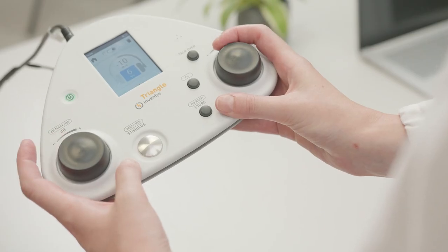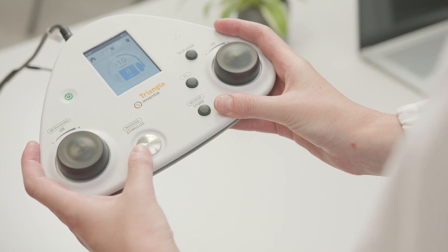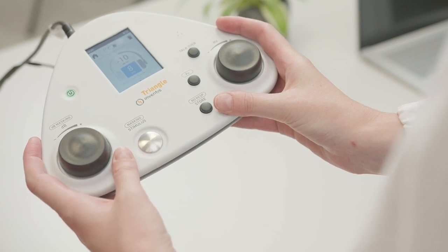In addition to its basic features, Triangle can offer a wide range of settings for pure tone audiometry. Of these, manual testing or a choice of three different automatic testing procedures, as well as the ability to use masking noises if the bone conduction license is enabled, may be considered the most attractive.